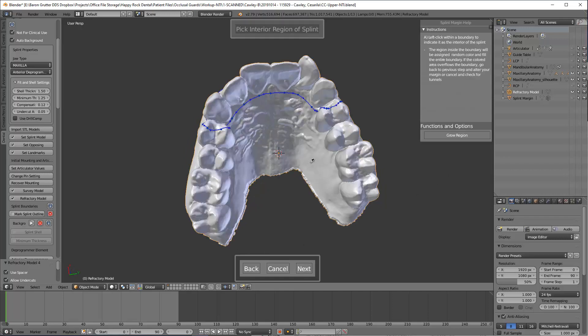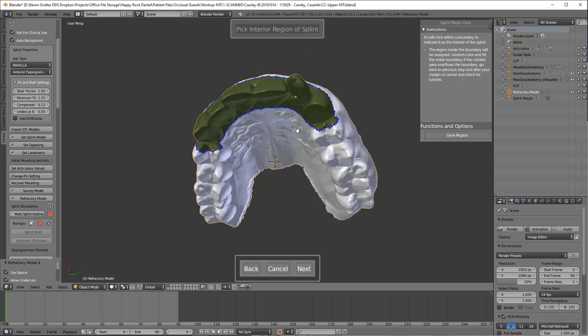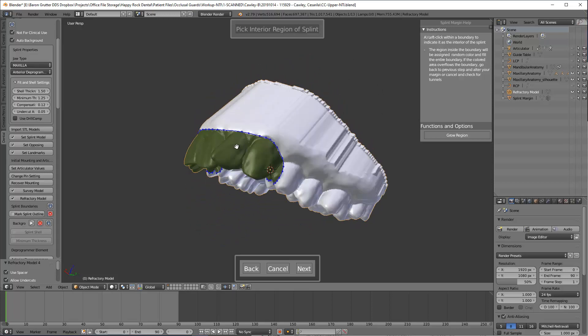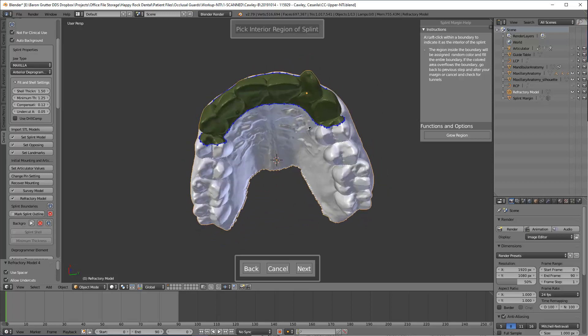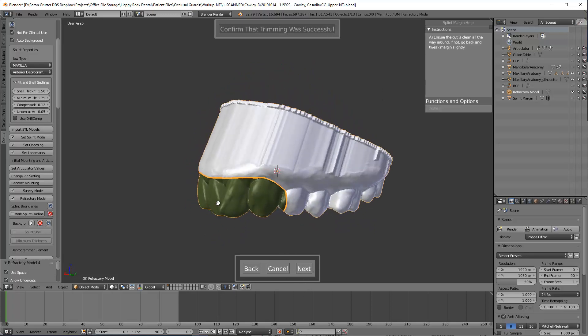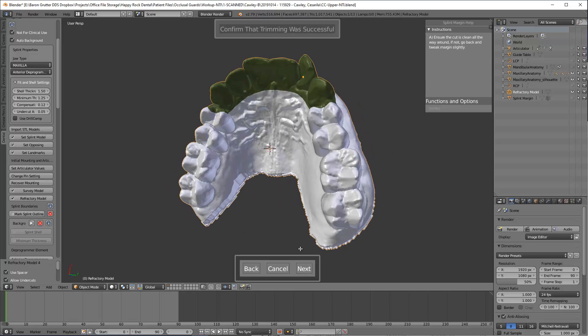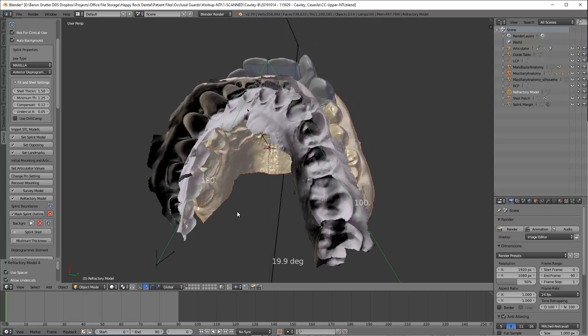So I'm going to click next. Now it's going to ask me to select what's the inside of the line. Is it out here or in here? Obviously it's right here. Turns this all green, different color, just demarcating what's the active area. Click next. And now it makes a nice crisp margin. If you don't have that, go back. Try again. It's rare, but if it does, that's why it's an opportunity to check.